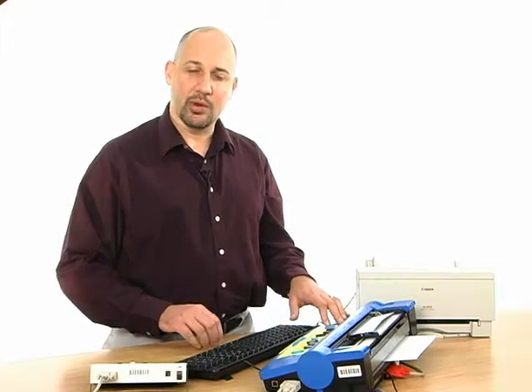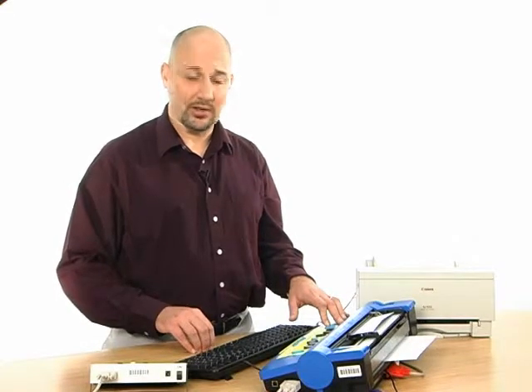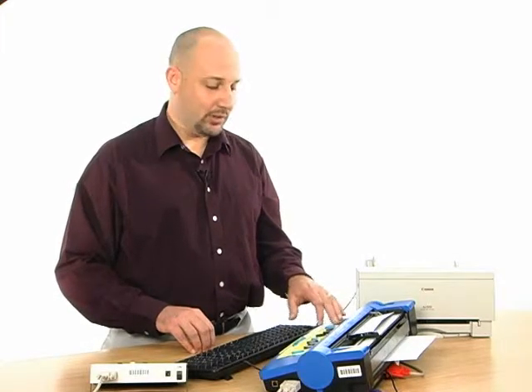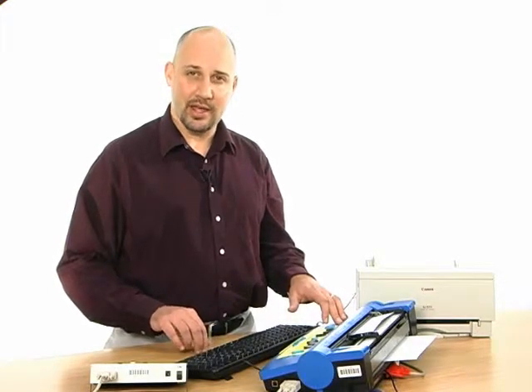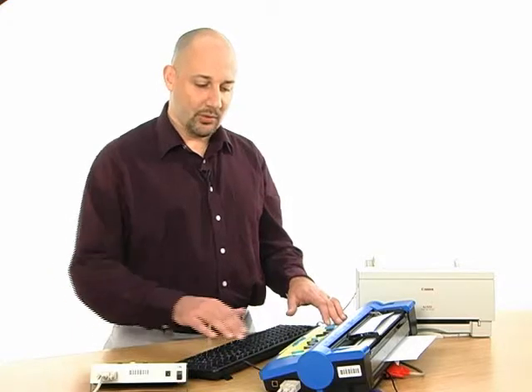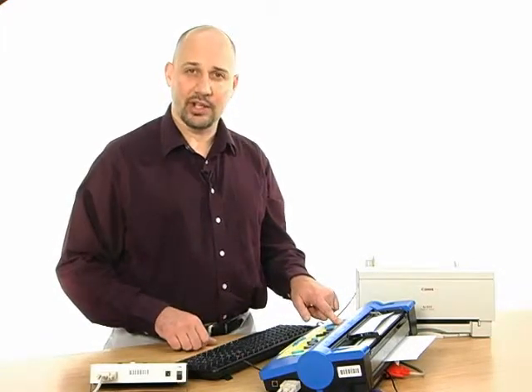So for example, if we wanted to put forward translation, the command for which is FE, on the left function key, we would issue the command KBLF, a space, then FE. Once we hit enter, that command will get stored on the left function key.